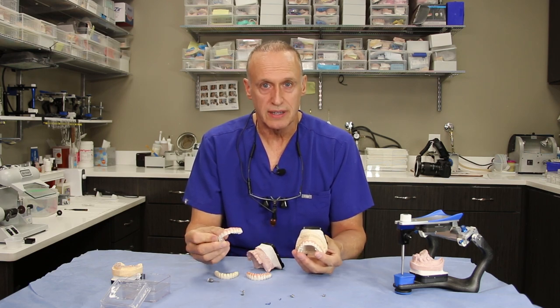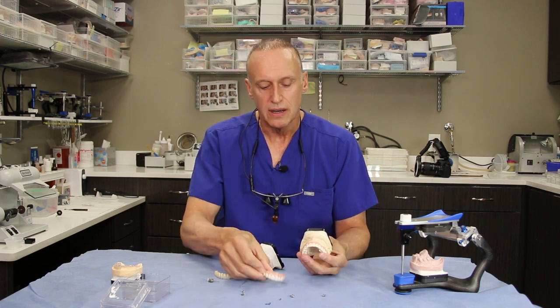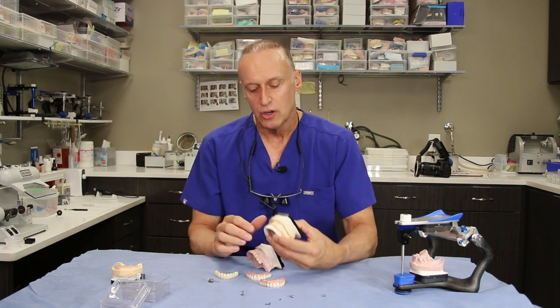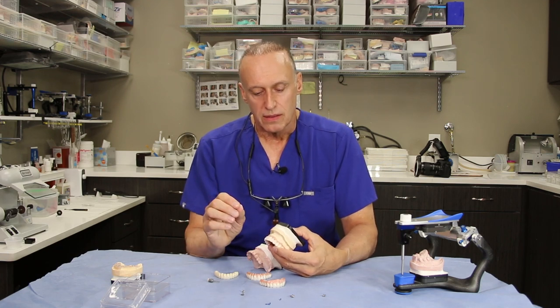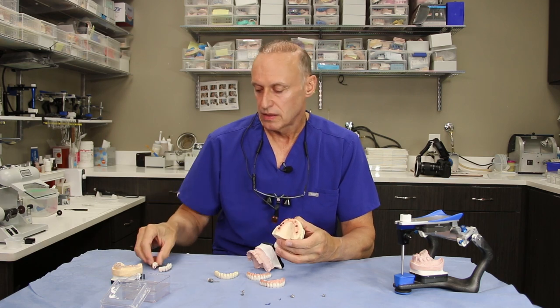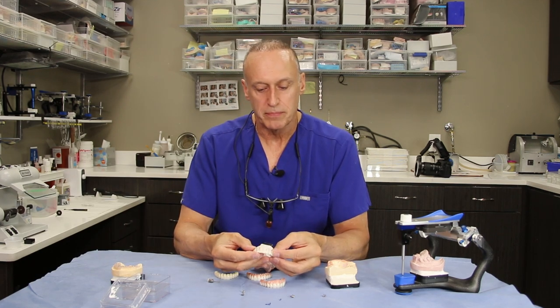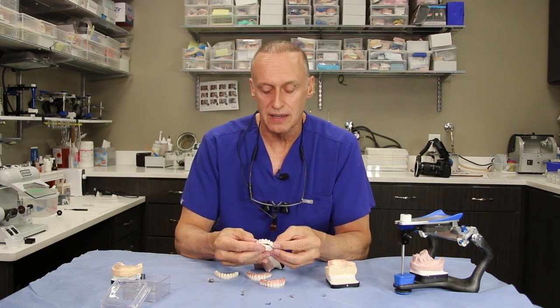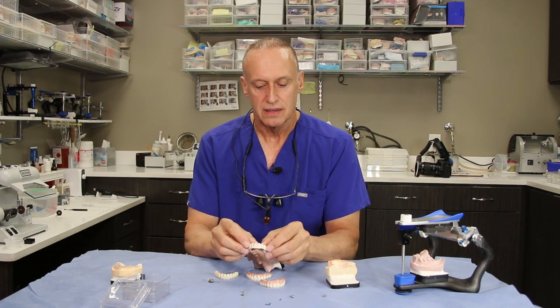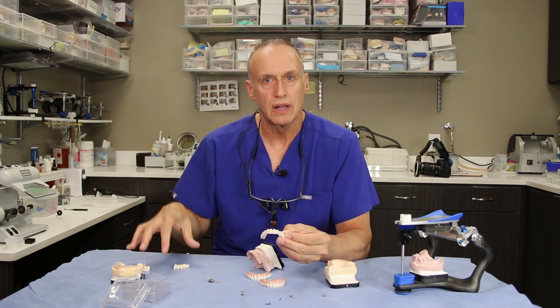I also invite the patient's family to come — any loved ones or significant others that could contribute to this try-in. That helps us get it just right. Sometimes it takes two or three try-ins with the wax prototype — sometimes we don't get it right the first or second time, but we keep trying until everybody loves the wax-up. Then this is scanned, a digital file is made, and the zirconium is milled to look like the wax prototype. We leave nothing to chance.